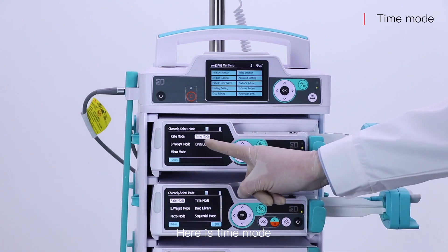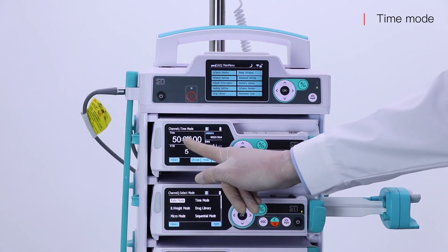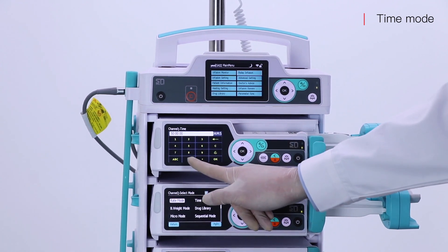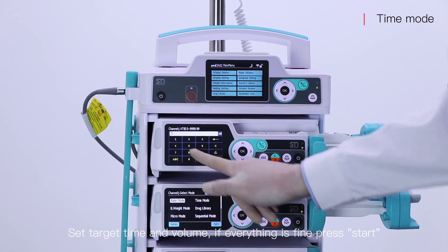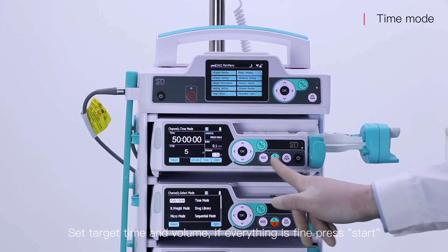Here is the time mode. Set the target time and volume. If everything is fine, press start.